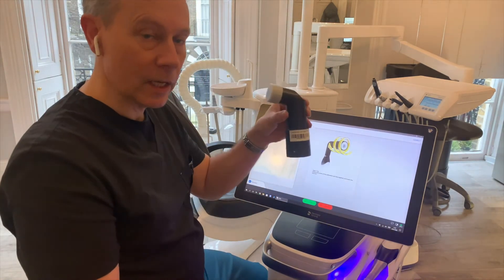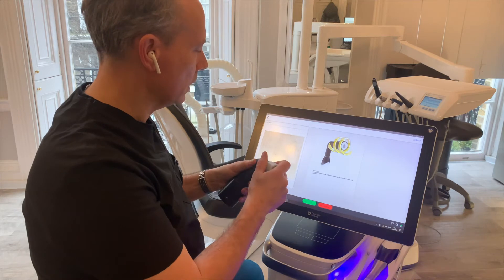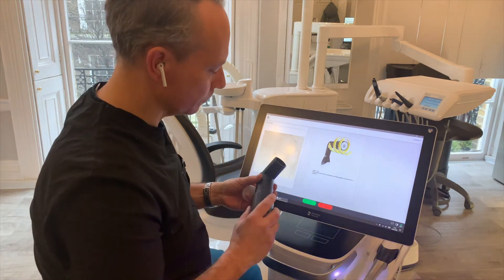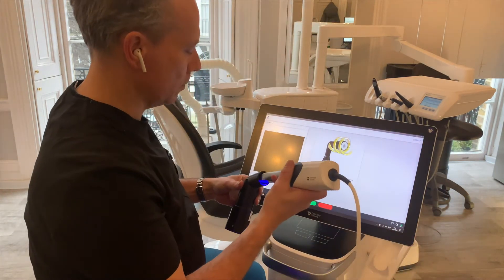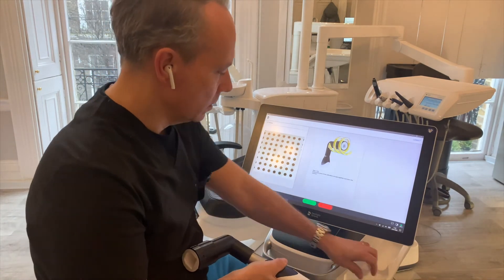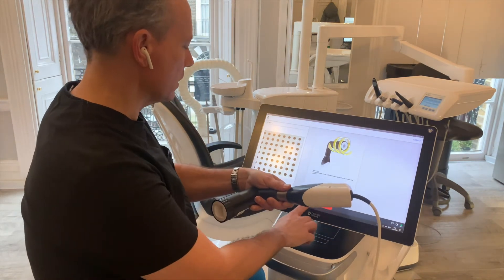You will need the calibration tool that comes with your scanner. On here it's got a part that moves and a cover. So we take the cover off — it will tell you how to do this. Make sure it's fully screwed down, and then we just put the scanner firmly into the base of it. Now you will see a projection of the pattern and it will ask you to start.